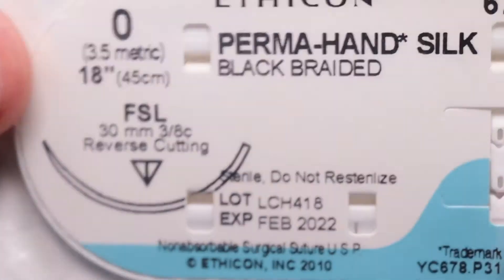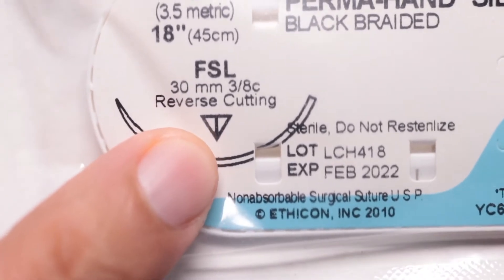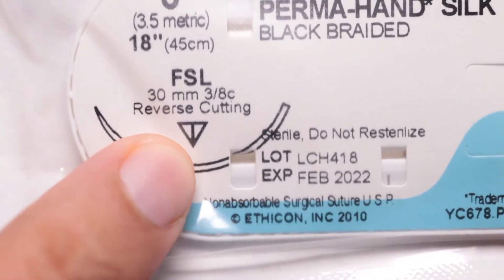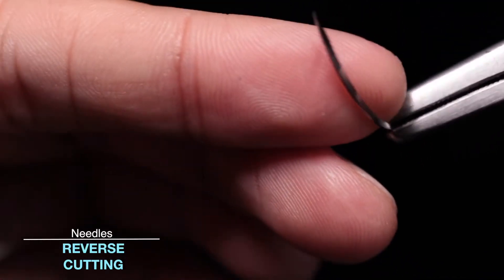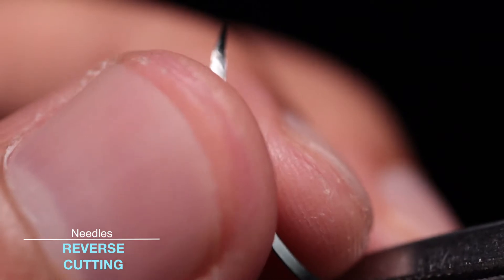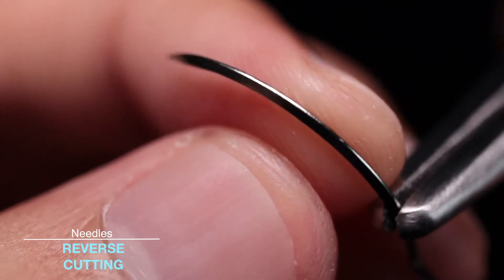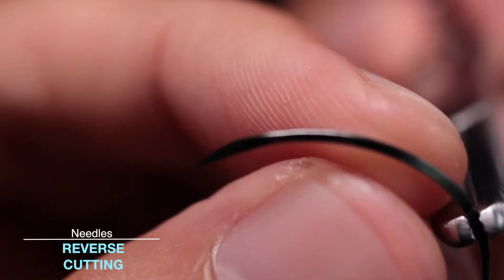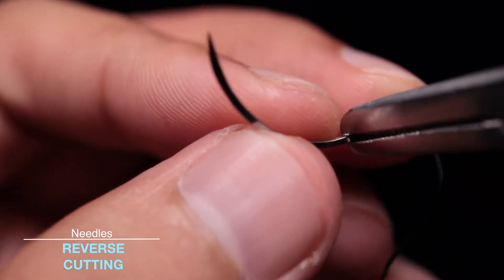Reverse cutting needles are actually far more common than conventional cutting needles. They're represented on the package by a triangle with the tip facing downwards, indicating that the edge is on the outside of the needle's curve. As you can see, the outside has this edge that helps, just like the conventional cutting needle, to go through tissues more easily. Commonly, we will use this for closures of the skin. You can see on the inside that it is flat, unlike the conventional cutting.